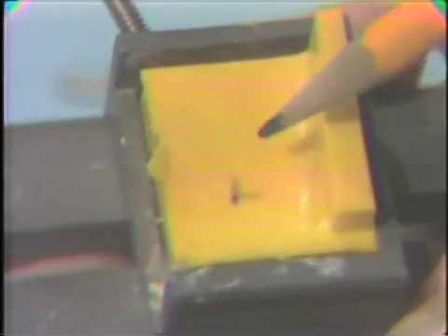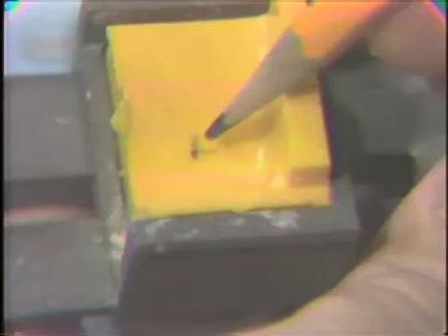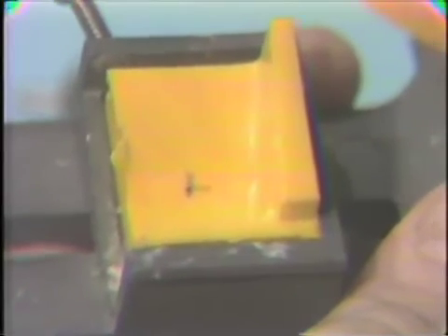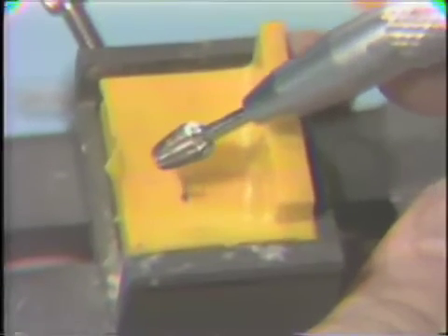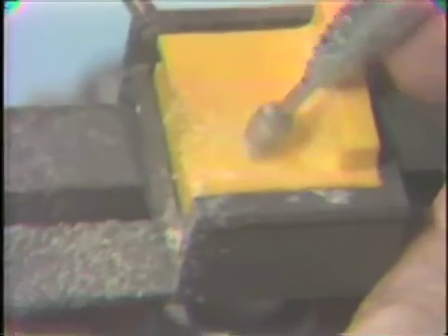As you can see here, the pencil shows our area of contact. We don't want any contact in this area because it'll cause deflection. We want only just the soft acrylic in this area. We don't want any contact with the blank. So now we go ahead with an acrylic burr or vulcanite burr, and we can go ahead and start relieving these areas of contact. Now we'll repeat this procedure until we get absolutely no marks in this condylar blank area.